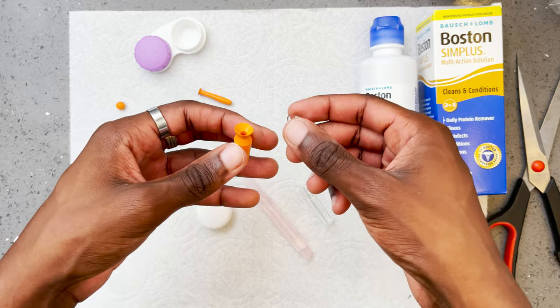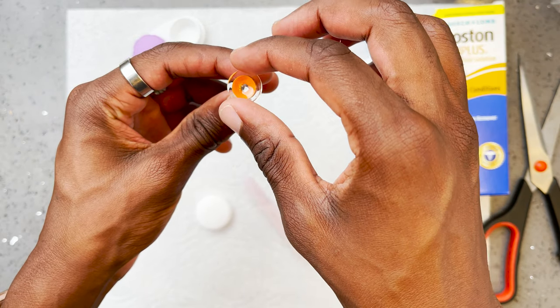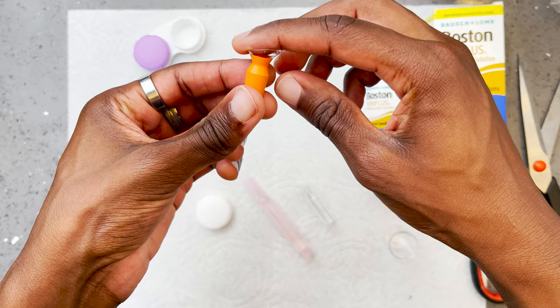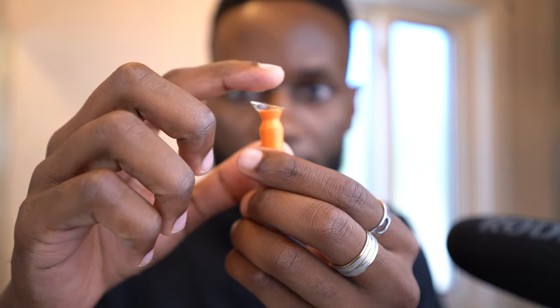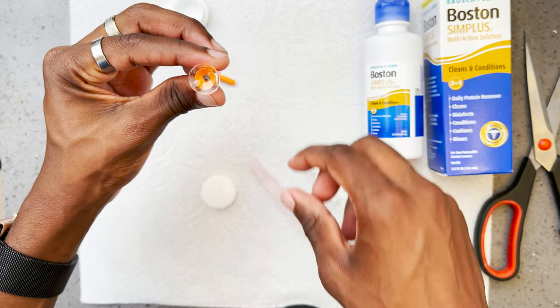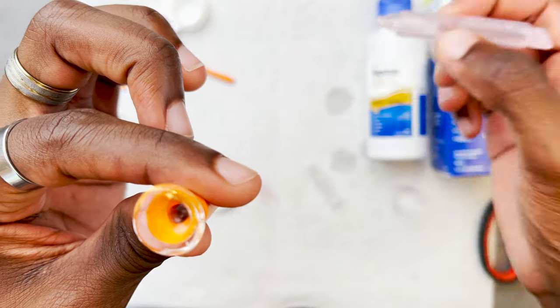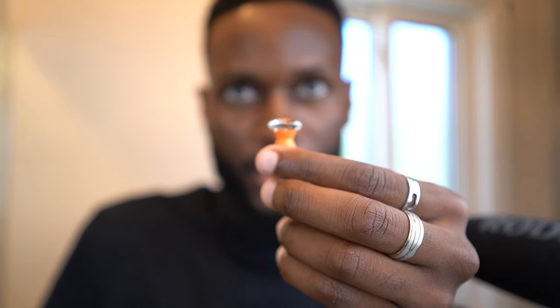Now let's go to the inserting process. I'll show a live demonstration where I take off the contacts I have on right now. We want to aim for the hole, so place the contacts on the inserter. Once you put it on, make sure everything is straight — not leaning. Then take out your saline solution and put it on top. This should last you both eyes and even some extra. Put in enough solution until it leaks a little bit to the side, overflowing with a nice curve all over.